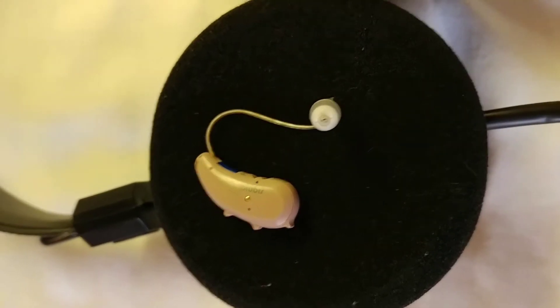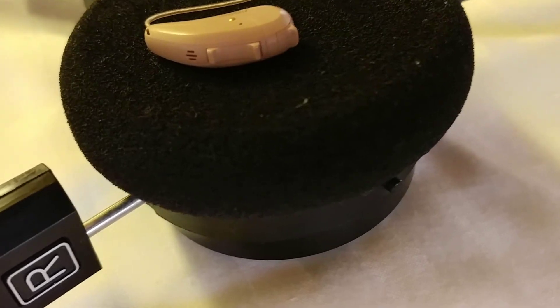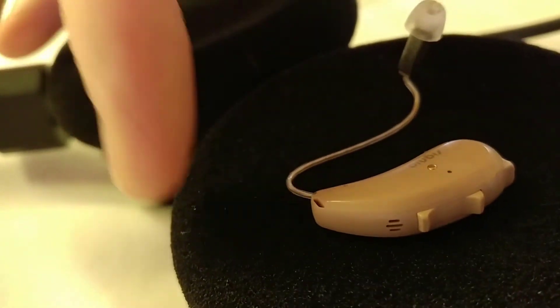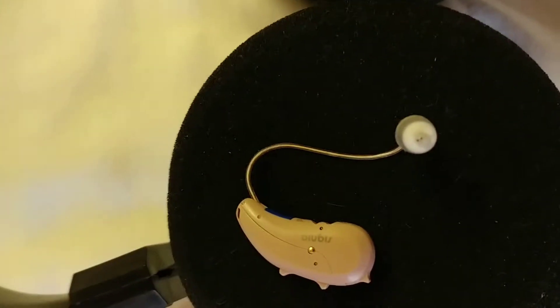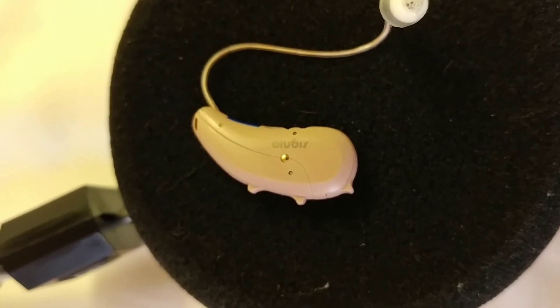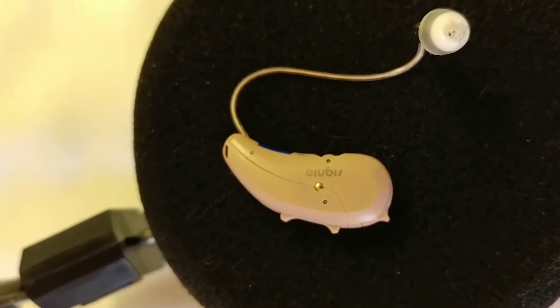If you place it on this Grado headset, notice that the airflow is available to the back mic. It's a little close to the other directional mic, but that's a nice open pad. And if you look at the other directional mic, airflow can come in there. So you really have the ability for sound to have relatively unrestricted airflow going into the hearing aid. Yes, some is going to come directly into the canal, but most of what you're going to hear is going to be through the hearing aid.